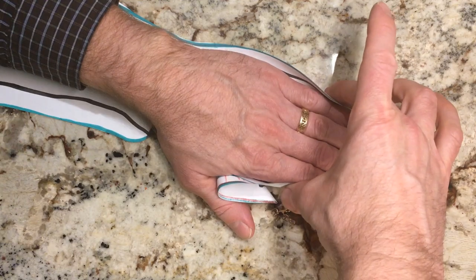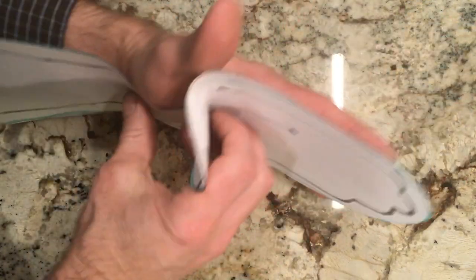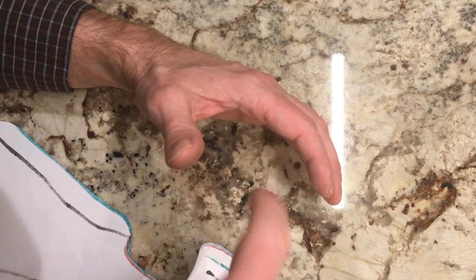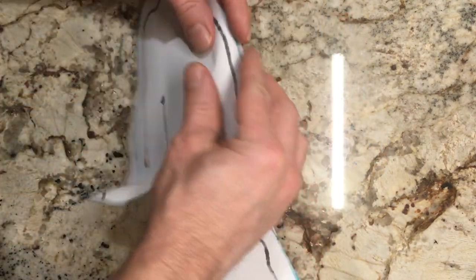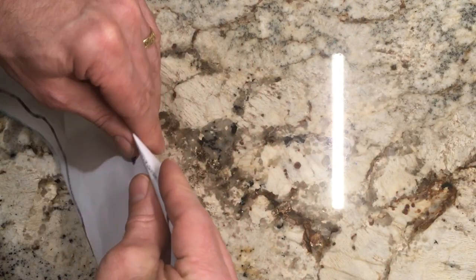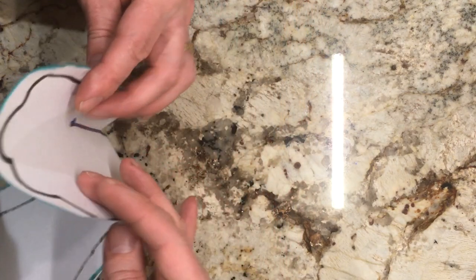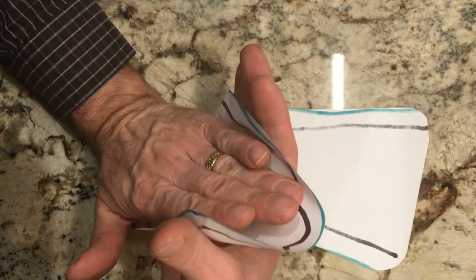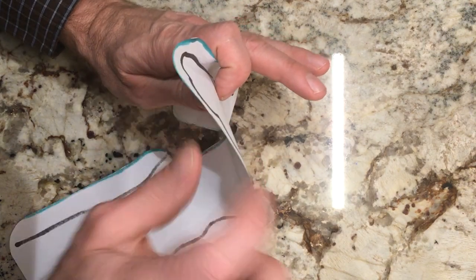Meanwhile on that side you have this contouring around the hand. When you do contour your volar wrist hand orthosis, you do want to make sure that you have a nice longitudinal arch for the fingers. Don't go totally straight, that's going to be pretty uncomfortable. And then this way, make sure you get this nice transverse arch. This orthosis should eventually have, in addition to the sides that will contour up and around, a nice concavity to it. There's the temptation often just to make it flat, but if you make it like that you're going to end up with fingers that are scrunched up and that's going to be uncomfortable. So make sure you respect that distal transverse arch as well so that the hand goes the way it is designed to go.